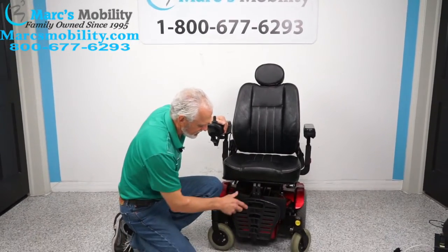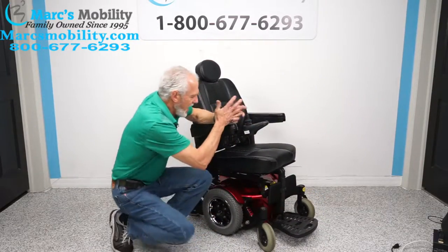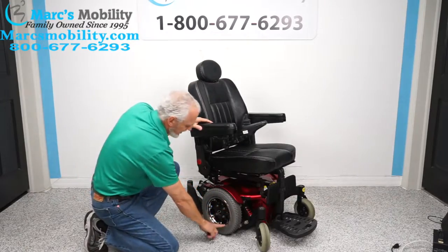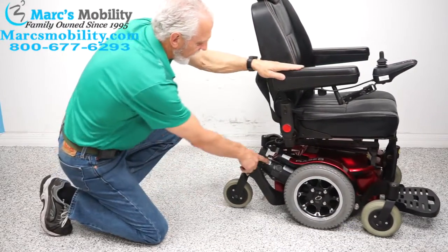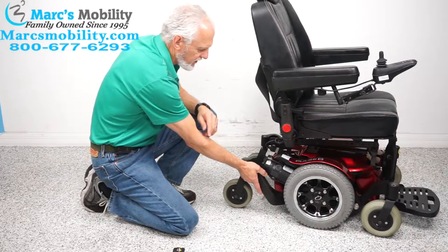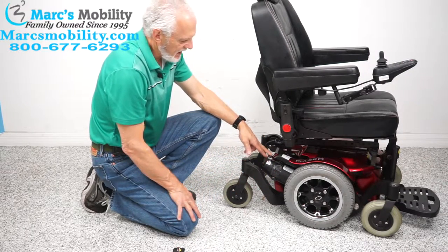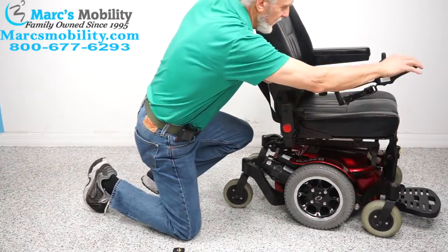It's a captain seat. You can see the foot plate flips up when you exit the chair. In the front of the chair there are yellow shocks — you can see the suspension. These are solid tires with a chrome rim. Here are the four-pole motors, and you also have another shock for the front fork. This four-pole motor has four brushes in it — it's a great motor.